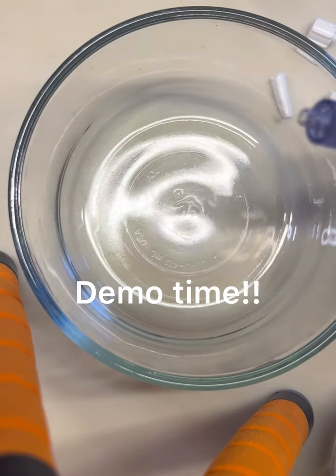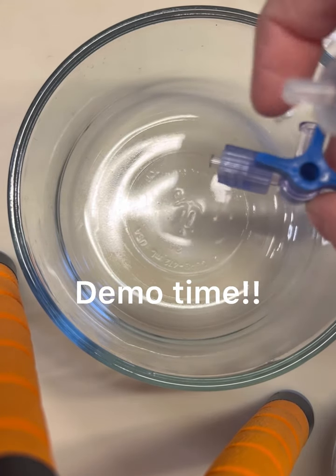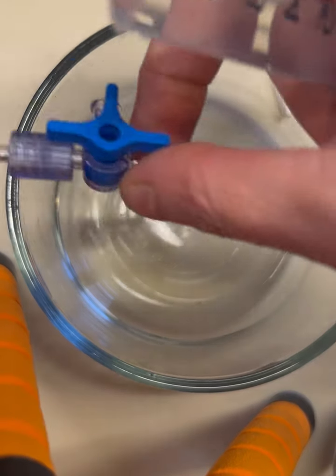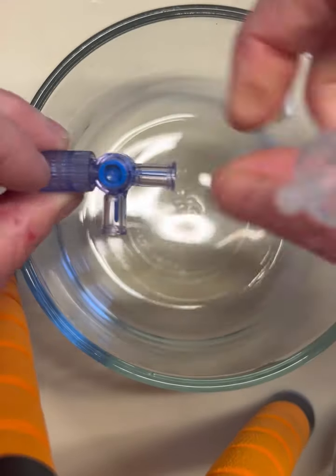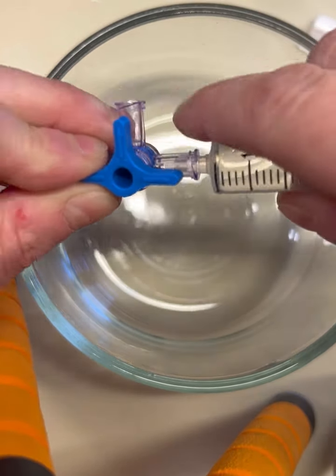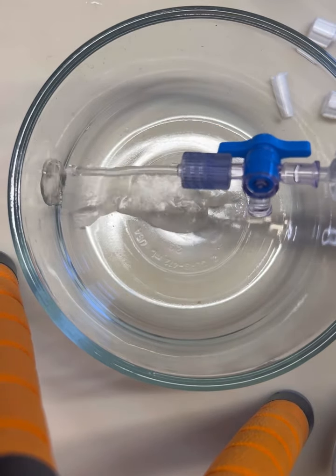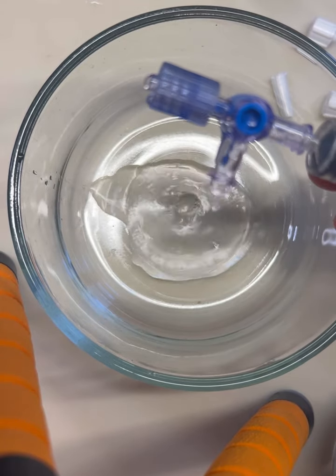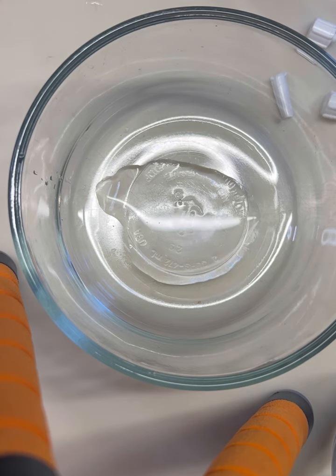I've removed all the caps. Let's just say this is going to a chest tube, into an abdomen or a cavity — you're doing thoracocentesis, something like that. This is going into something. Over here, we're going to hook up a syringe, which by the way has some water in it. We attach — now watch, all three are open. So you have water that is coming out of both the center and the end, making it very complex because that's not what you want.